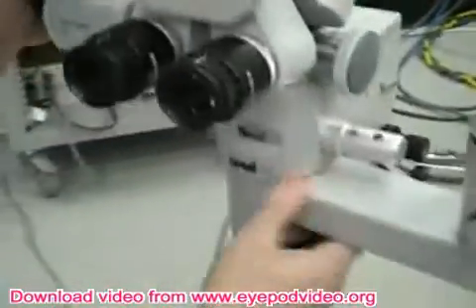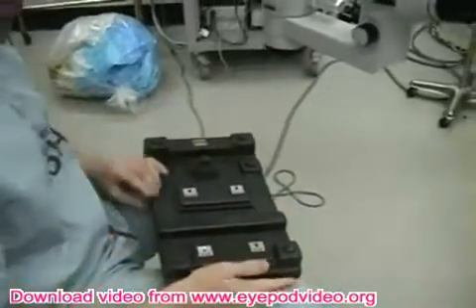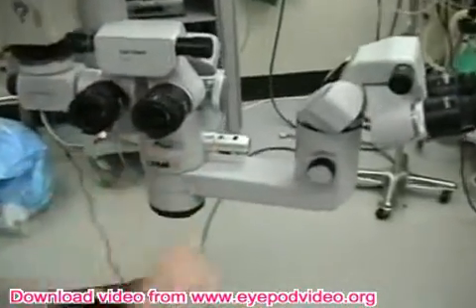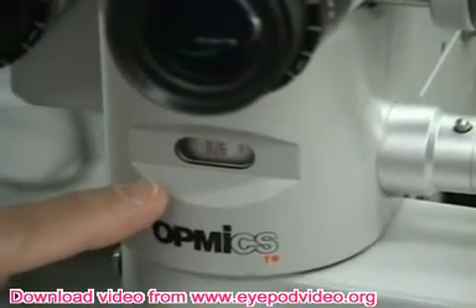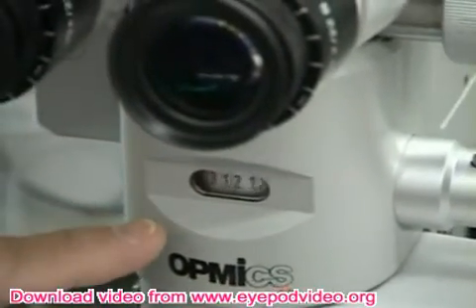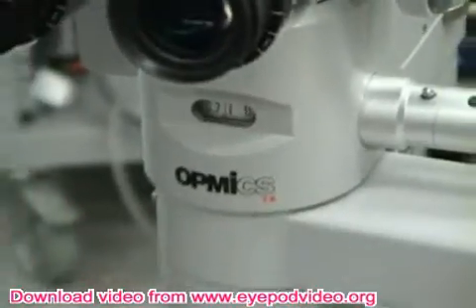When we push the focus on the pedal, the microscope moves up and down relative to the position you have at the very beginning. Now when we change the zoom, you can see right here that the internal zoom is changing — this is less mag at .4 or more mag. Here's the maximum mag you can get, which if you really want to zoom up, you almost never get that high. So in front of the bar is focus, behind the bar is zoom.